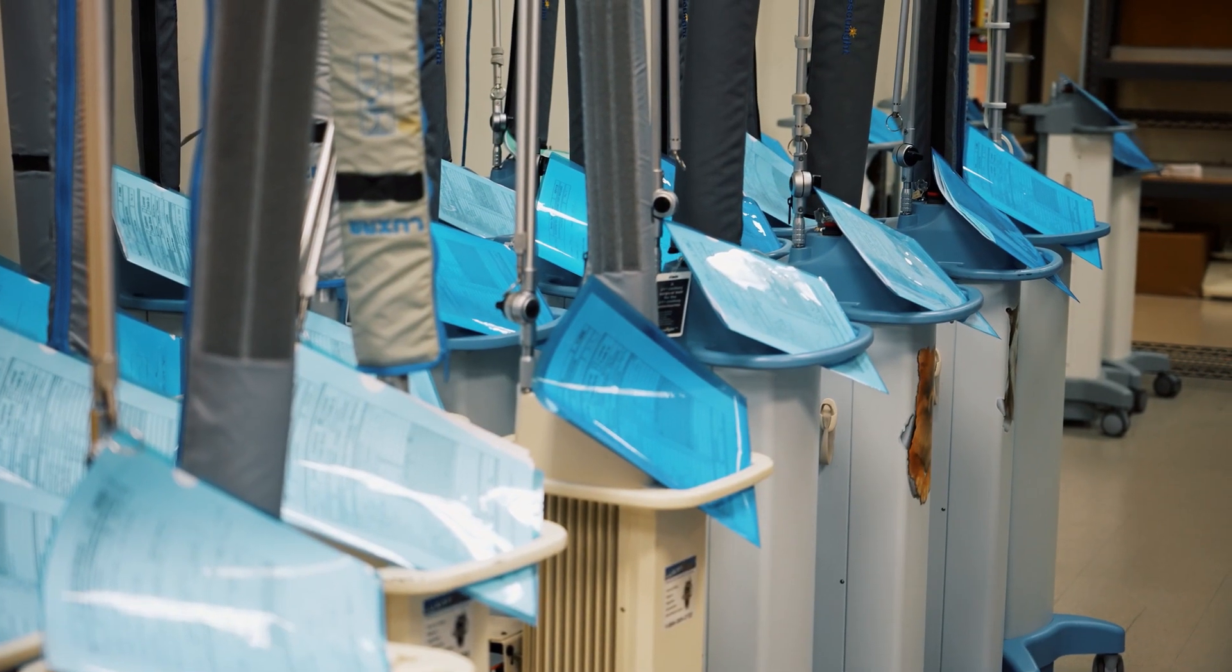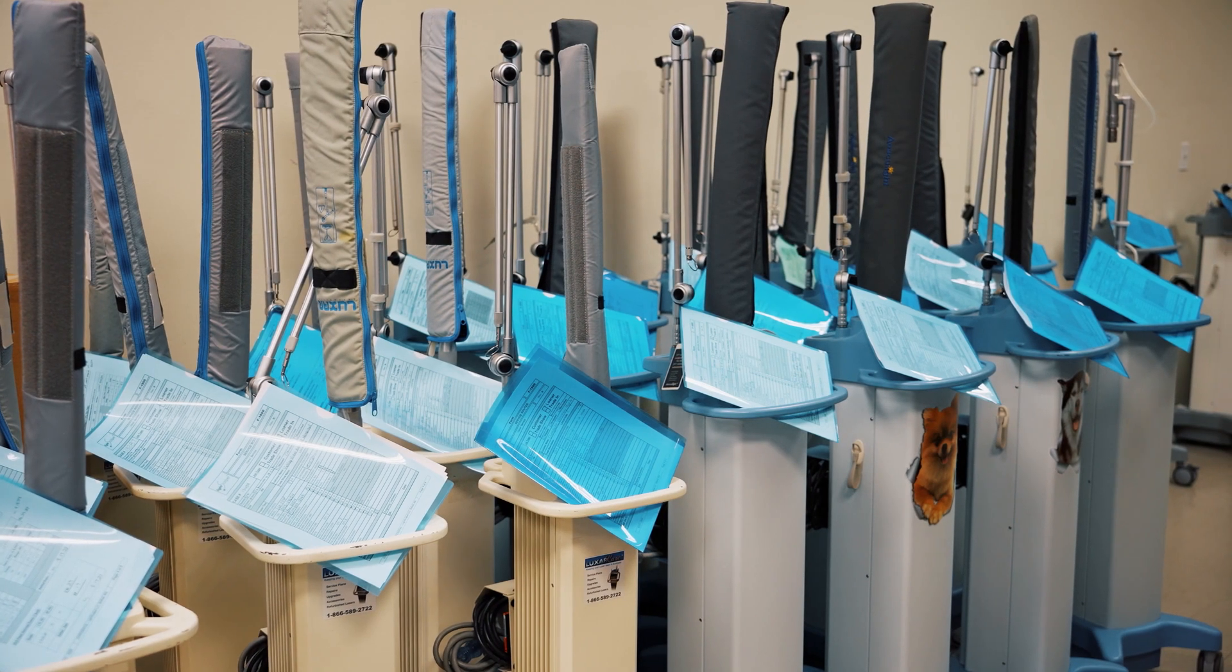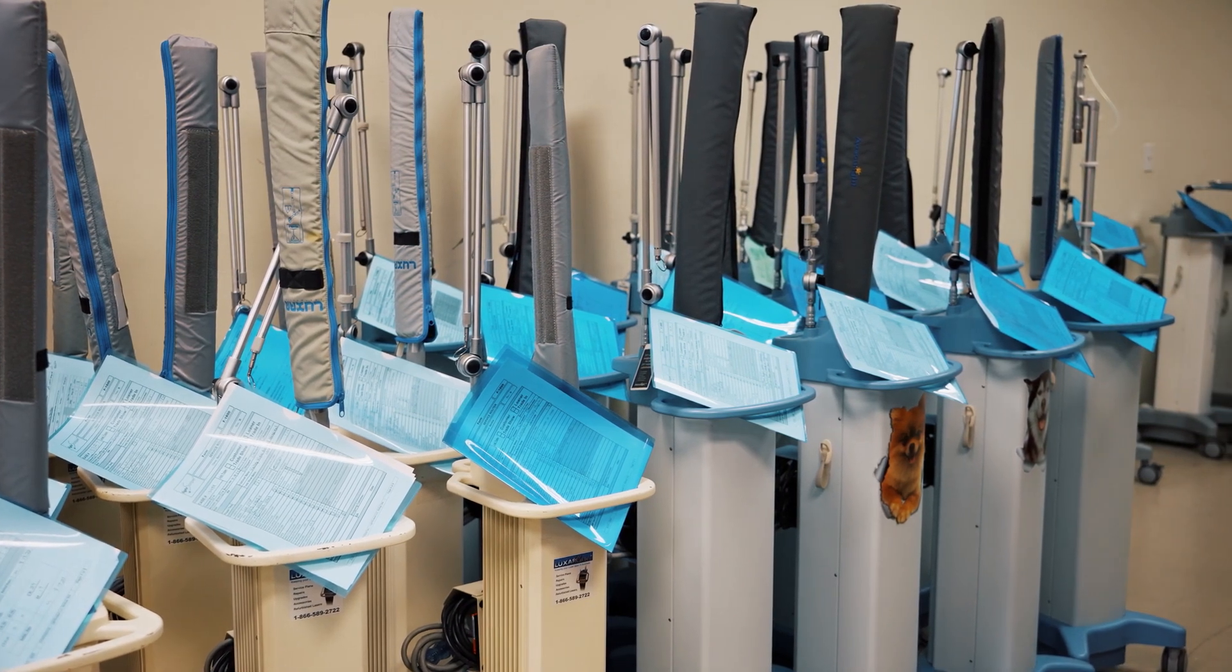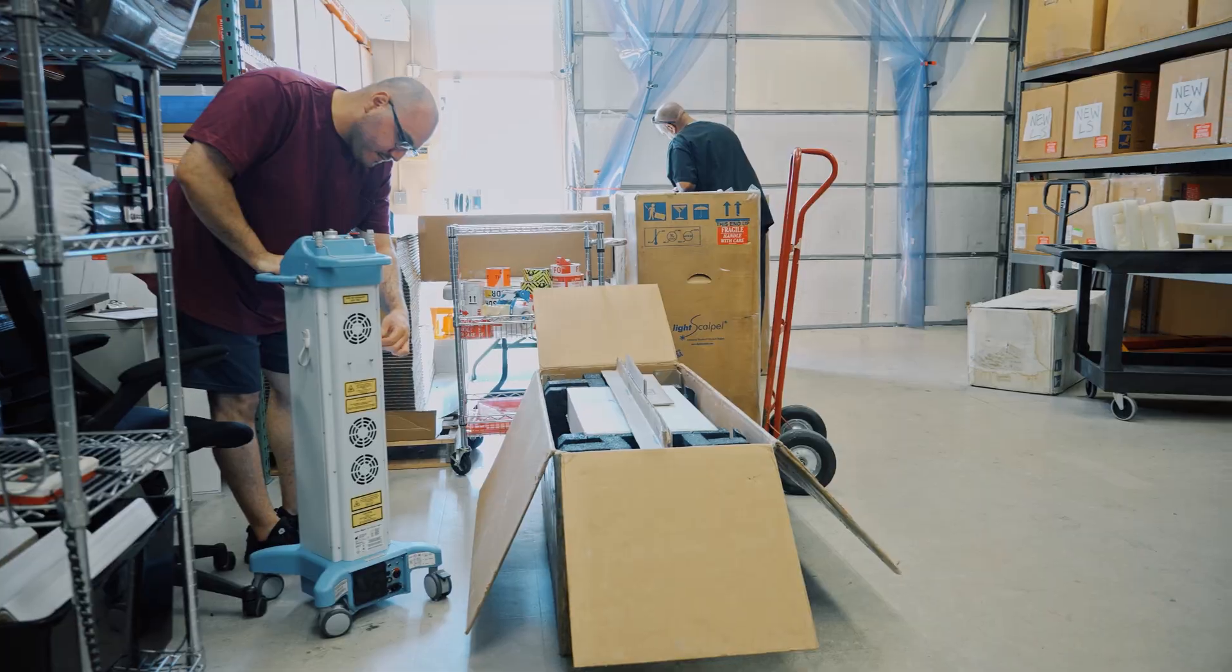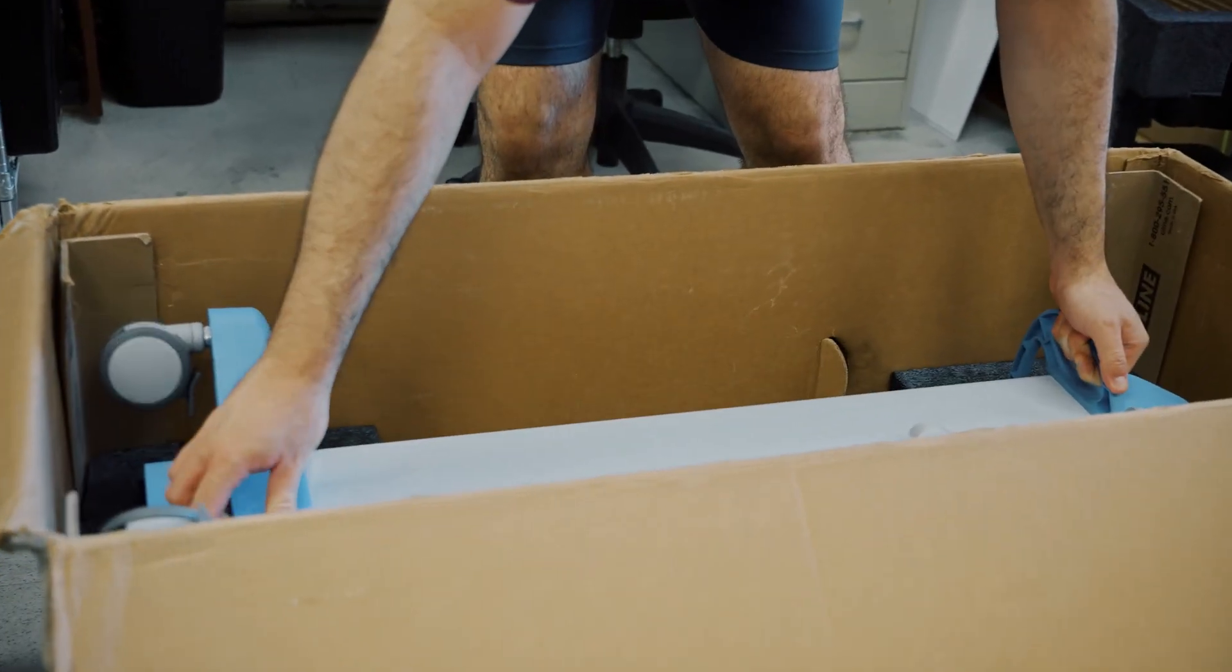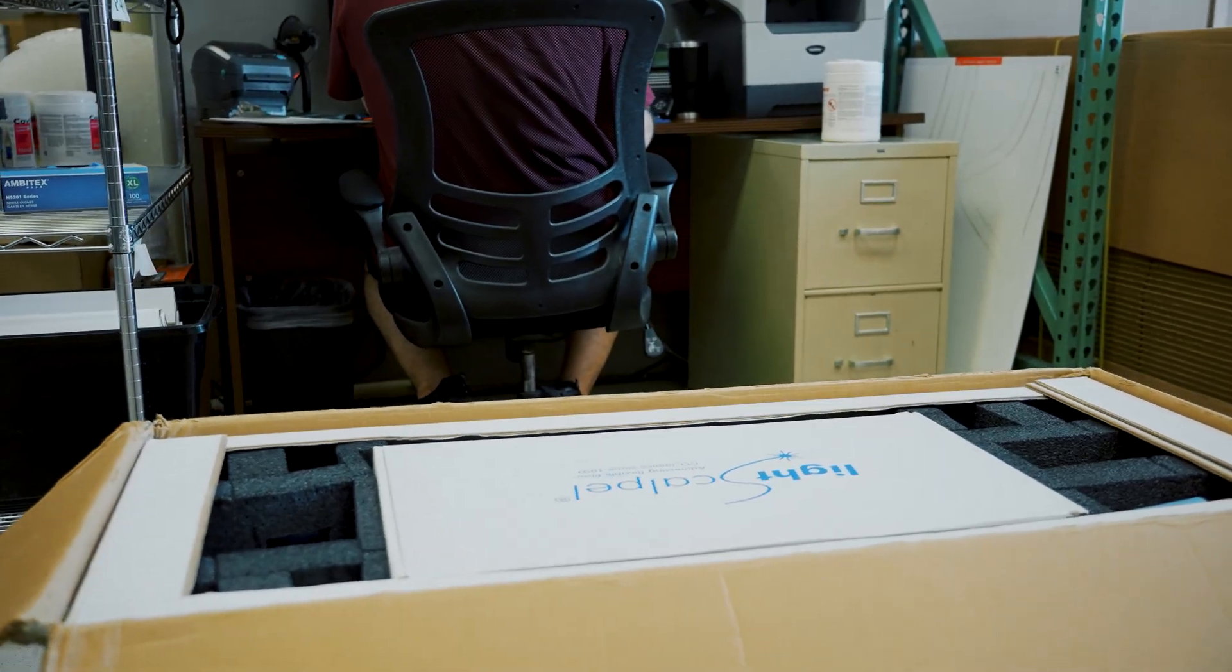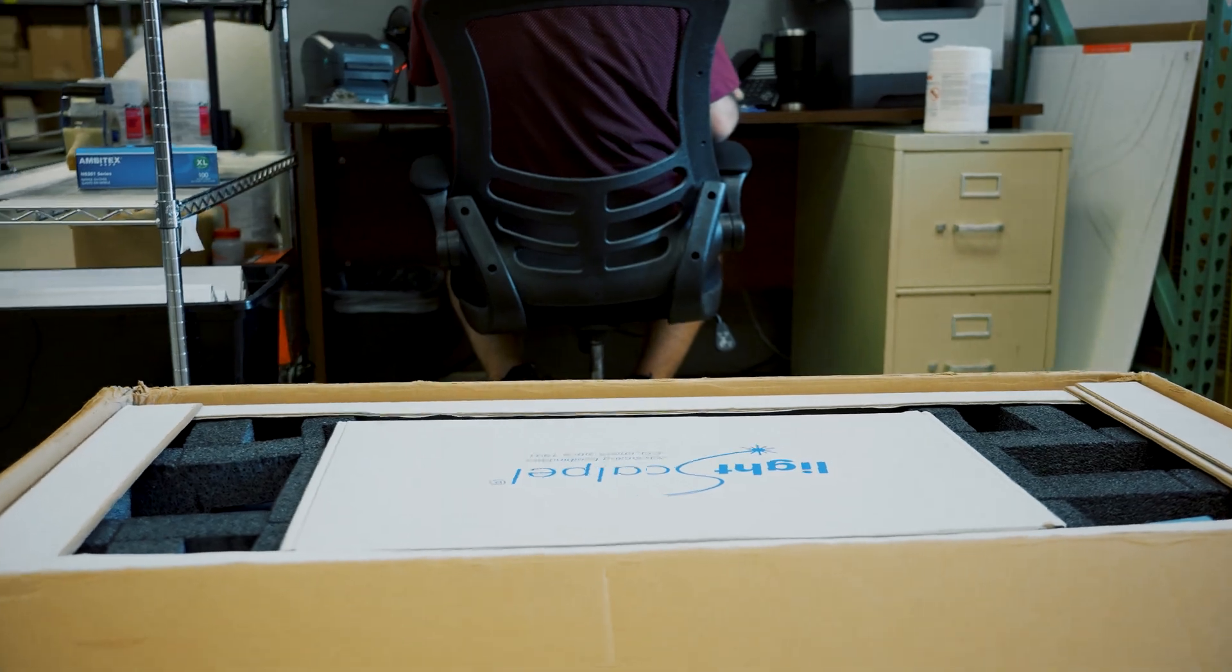Our systems come with premium warranty. Premium warranty has a loaner service provided, so we ship a laser out the day we hear of an issue. We do everything we can to keep them up and running.